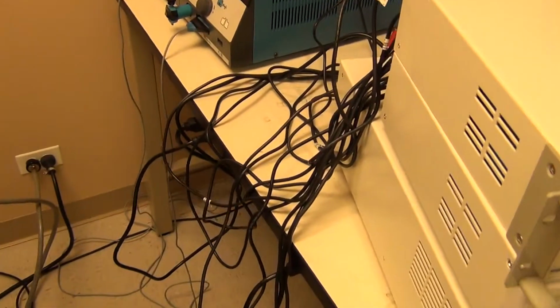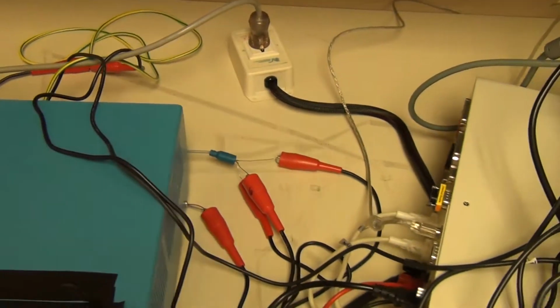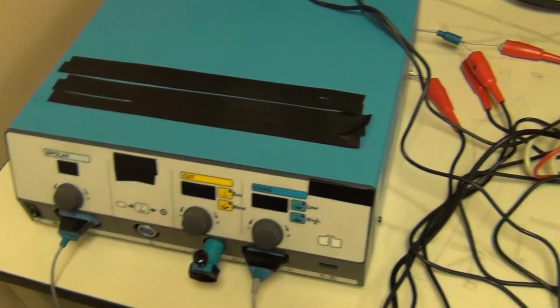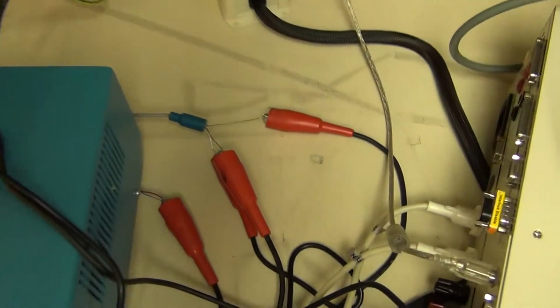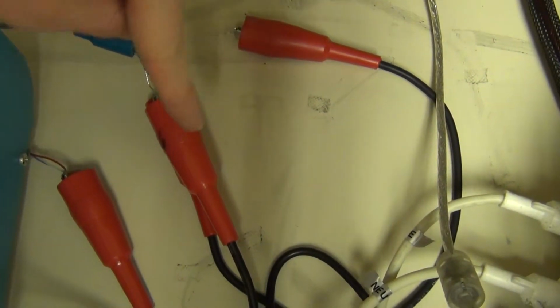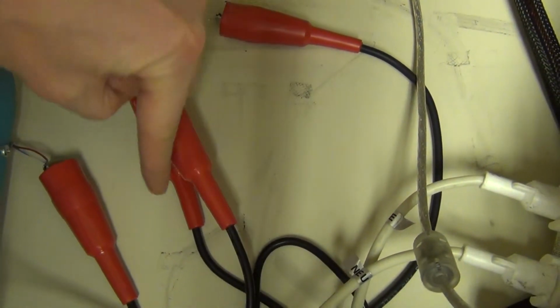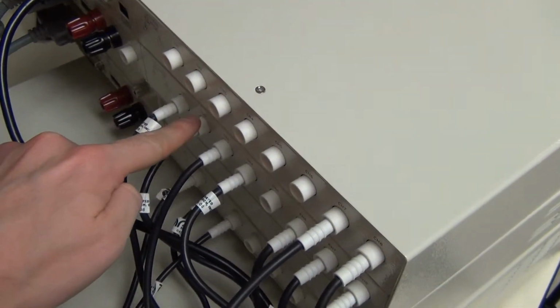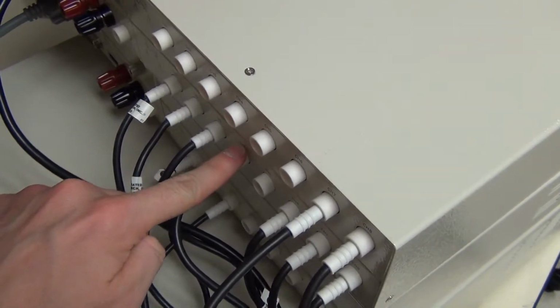So there's a lot of wires going on back here, and hopefully you can see this without too much difficulty. Basically what we have here is a medical device with 4 patient leads. And I have the 4 patient leads connected here. You can say I have 3 patient leads connected here and the 4th here. Those are going back to the master channels 1 through 4. Patient lead 1, 2, 3, and 4.